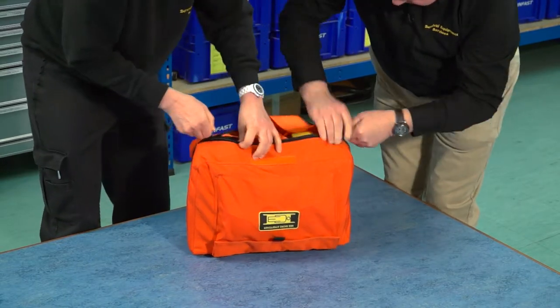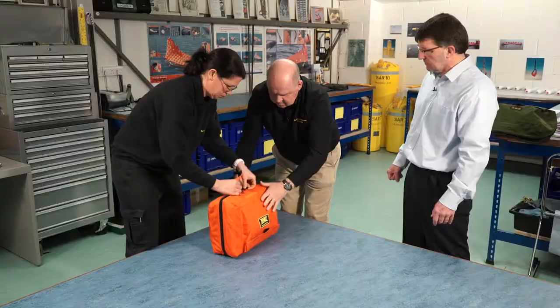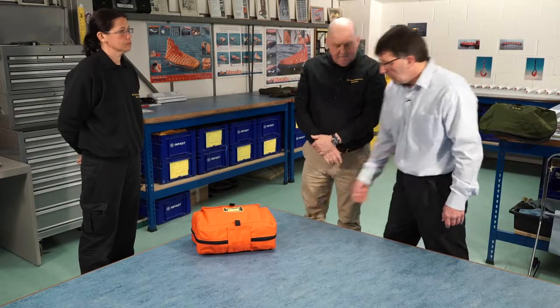But presumably it's very important that you do put it away properly, because that's going to make the deployment next time you need it that much more secure. Yes, each stretcher comes with its own packing and technical manual covering how to do both.